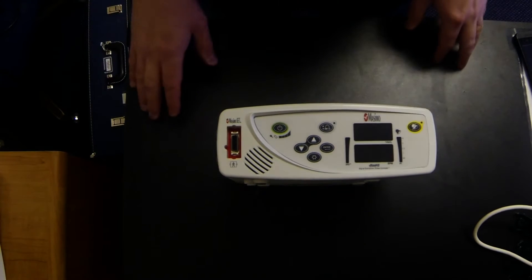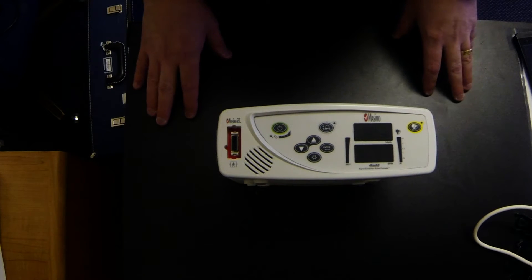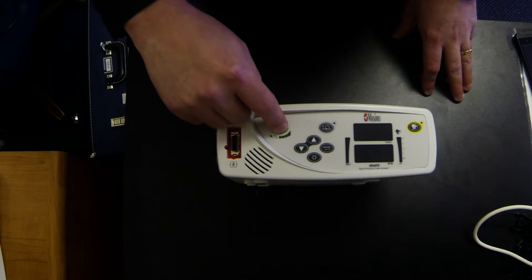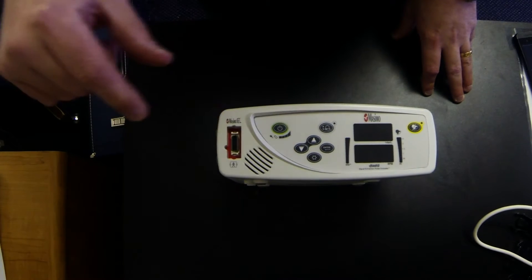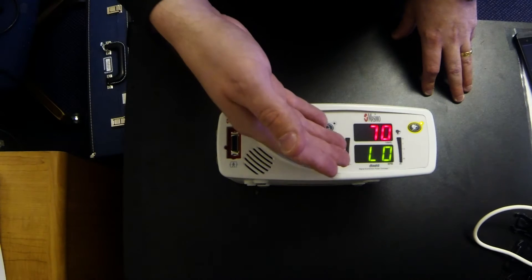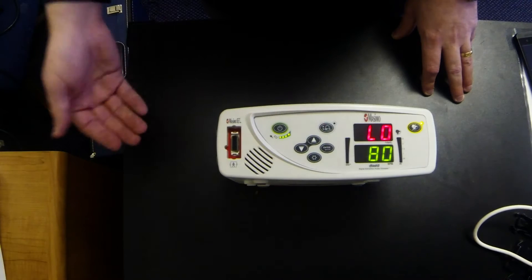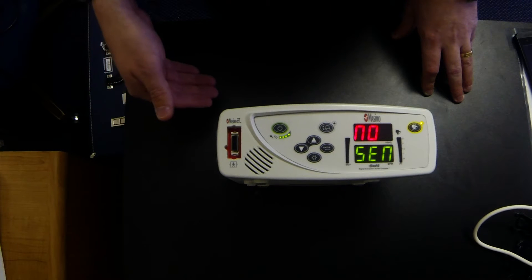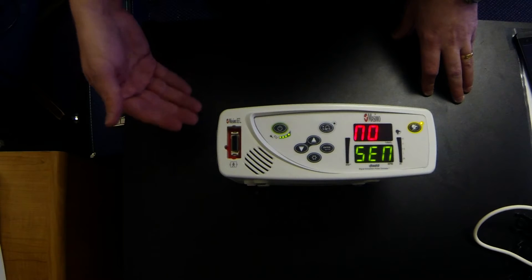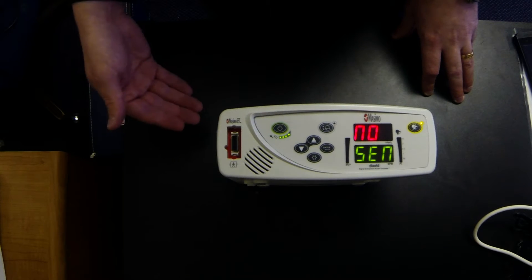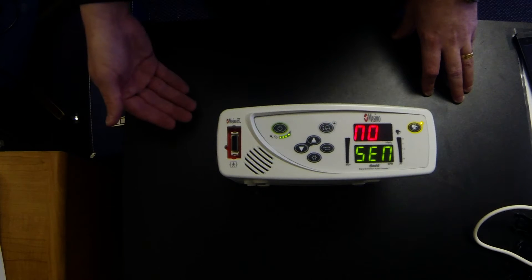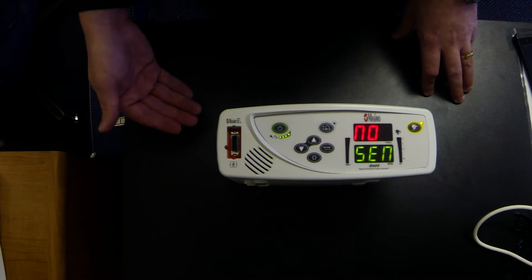The RAD8 is also very patient friendly. There's only really two buttons that you have to worry about, and that is one, the on/off button. To press, you just press and release. The machine will turn on. It'll cycle through the alarm settings that your doctor has set for you. Tender Hearts has already programmed those settings into your machine and has saved them and locked them in. If in the future your physician wishes to change those settings, they'll write us an order, fax it to us, you'll probably have to call us, and we'll come out to your home and we'll make those settings per the physician's request.